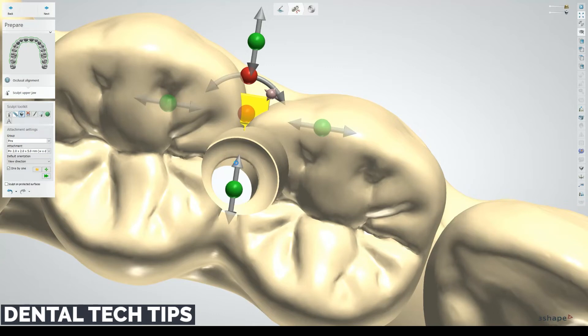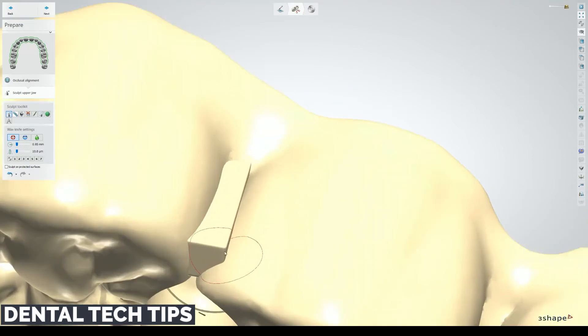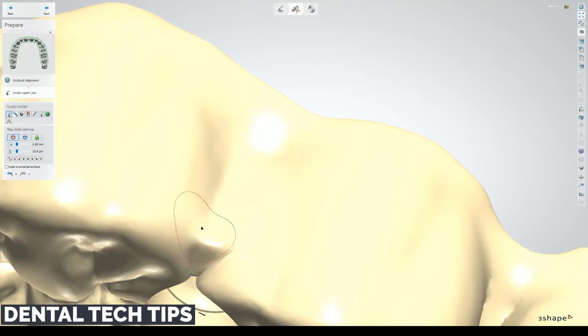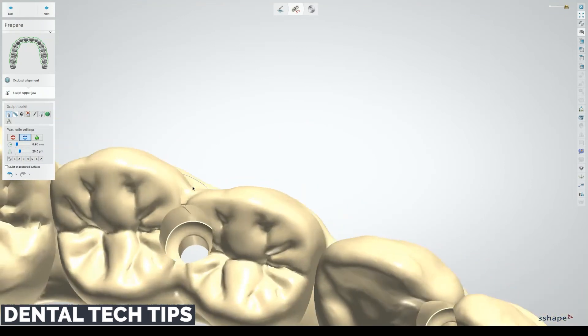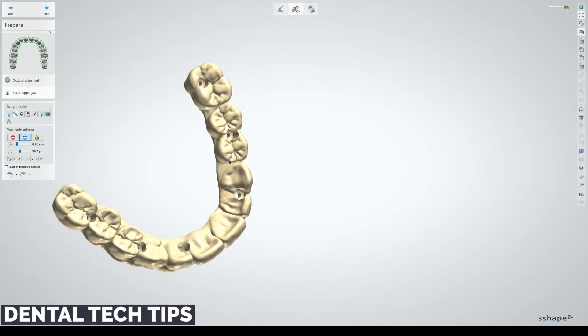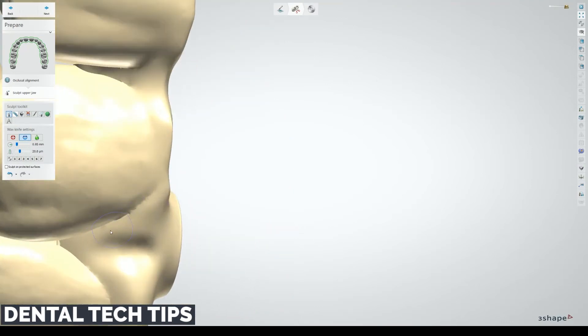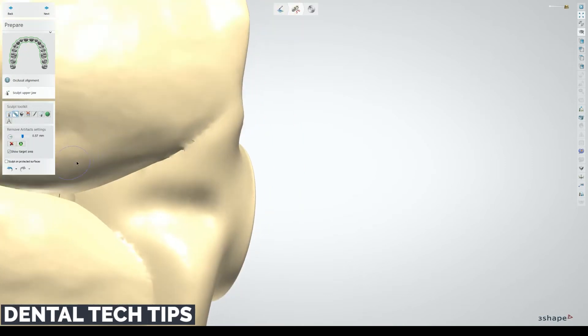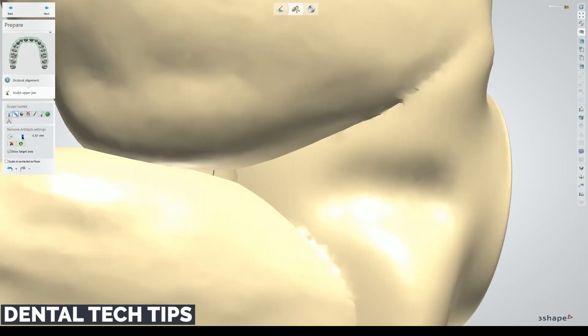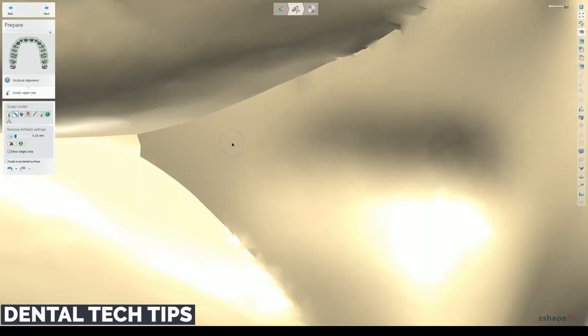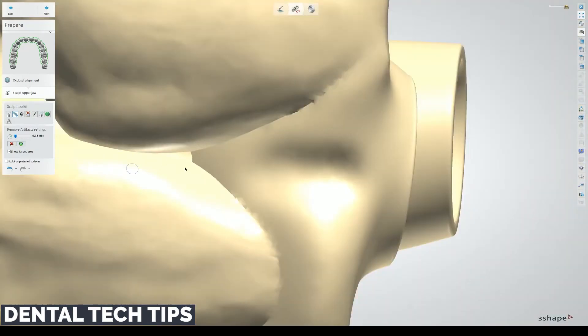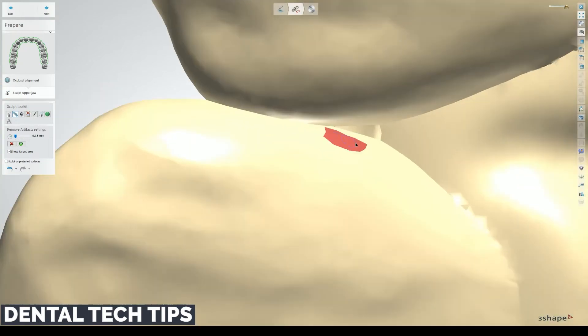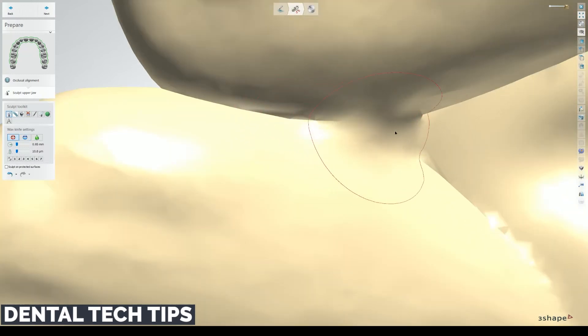Again, of course you could go through, redesign, close up these embrasures, but for the sake of this video I'm just kind of demonstrating it this way. Just to show you the power of these kind of outside of the box ways to use these tools. This one here, you could again do an attachment. But we'll be brave and use the band-aid tool here. Remove artifacts. Just draw. And that'll patch that up. And sculpt it a little bit.